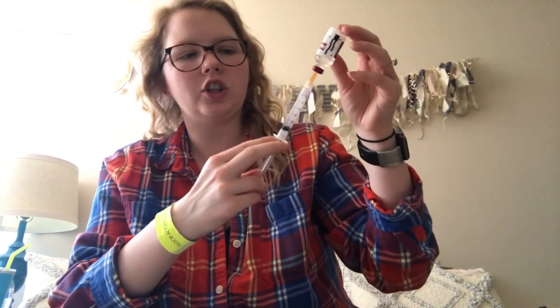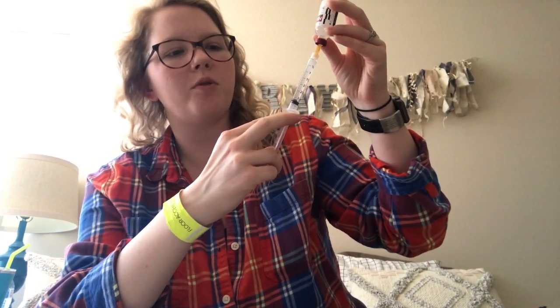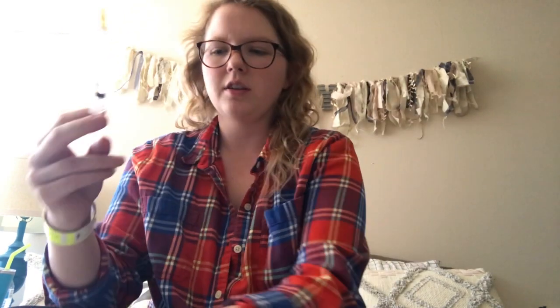It's just about done and I pull a little bit past because we're going to have to shoot a little bit of bubbles out. Right there you can see that's 3 mLs, and 3 mLs translates to 300 units, which I use about 300 units for three days.